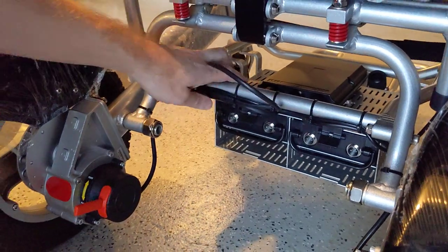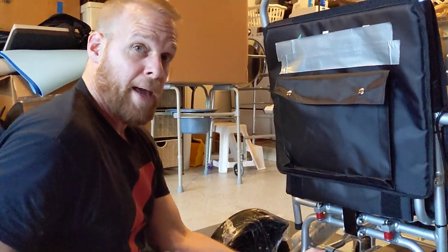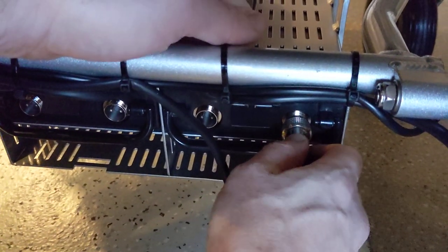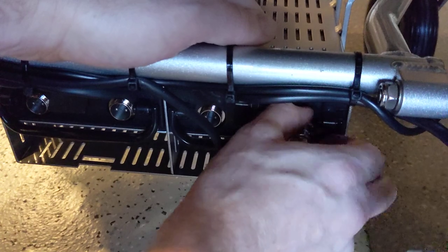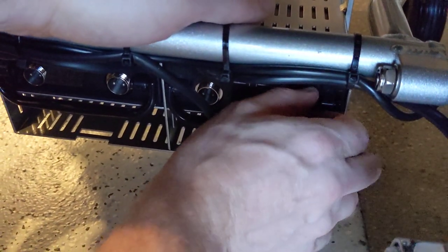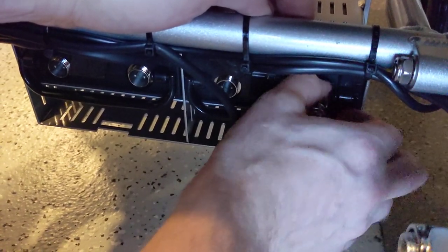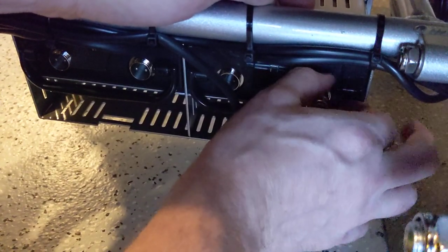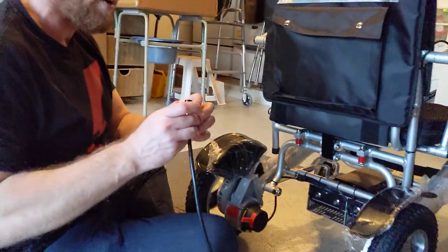I've got to lean forward, snap one battery in, lean forward, snap the other battery in. Now I'm pretty much sitting cross-legged, and a lot of people can't sit like this, so you'd have to be on your hands and knees. I'm moving as fast as I can here — it's not really easy. If you had smaller, thinner fingers it would be a lot more simple. Okay, almost done — still turning it in, got to get it snug. There we go, that's snug. I put the sheath on — so one battery is connected.